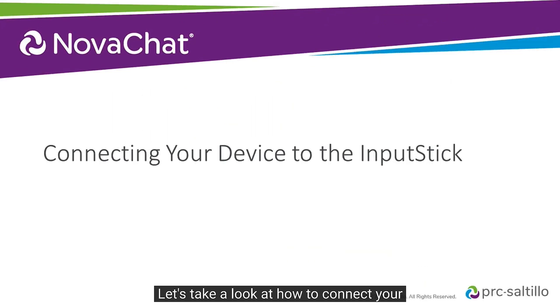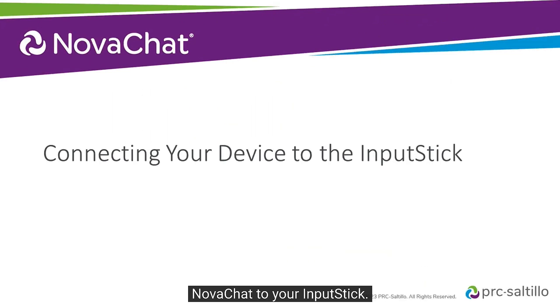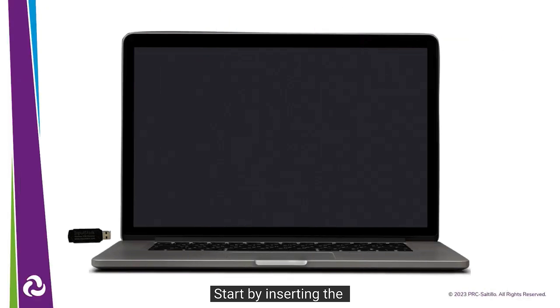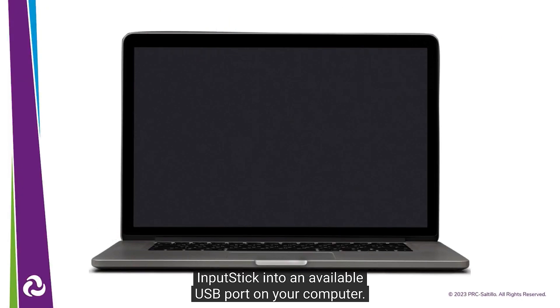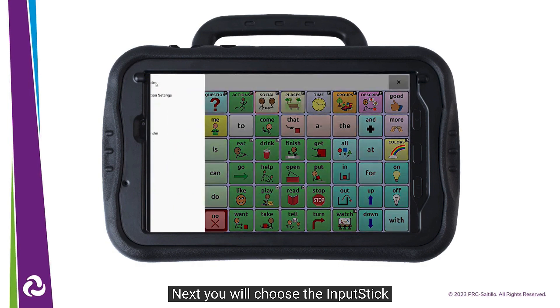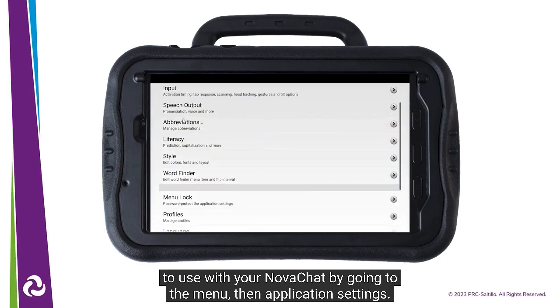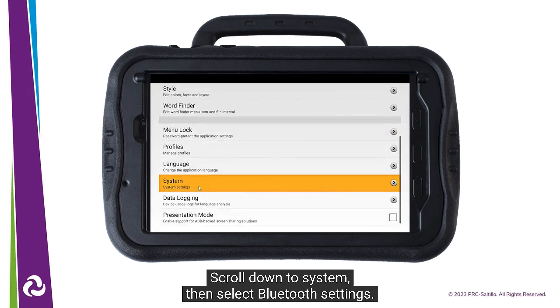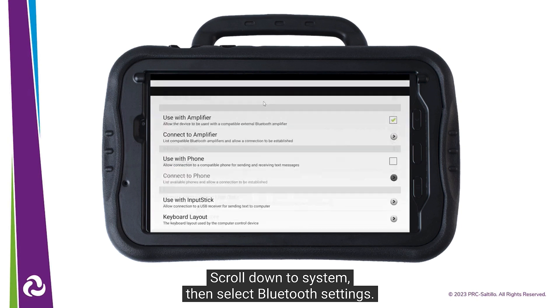Let's take a look at how to connect your NovaChat to your input stick. Start by inserting the input stick into an available USB port on your computer. Next, you will choose the input stick to use with your NovaChat by going to the menu, then Application Settings. Scroll down to System, then select Bluetooth Settings.